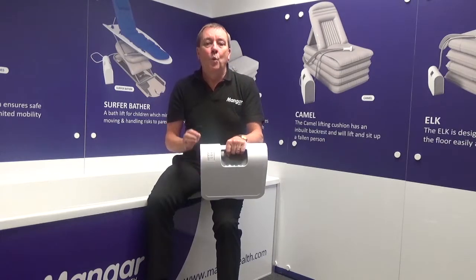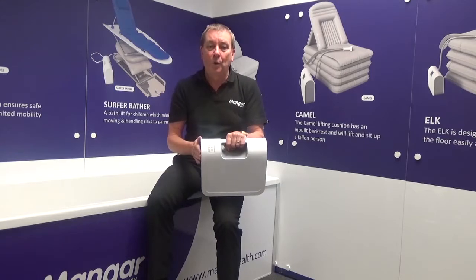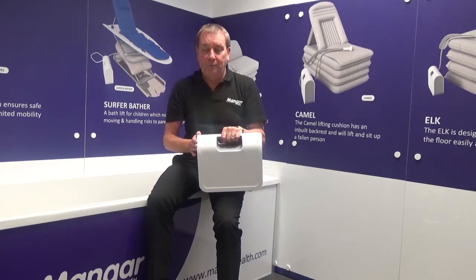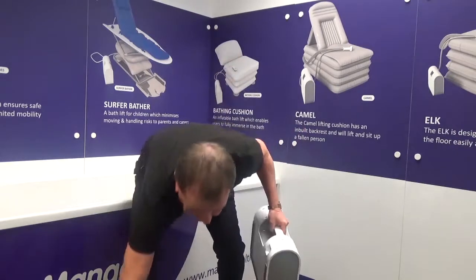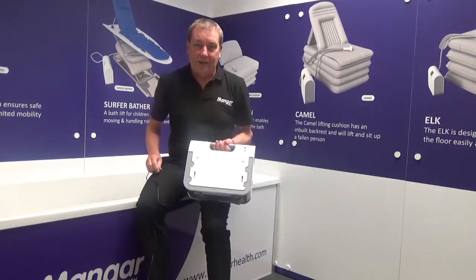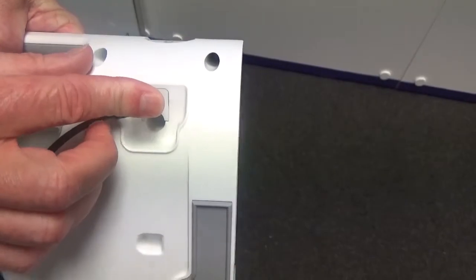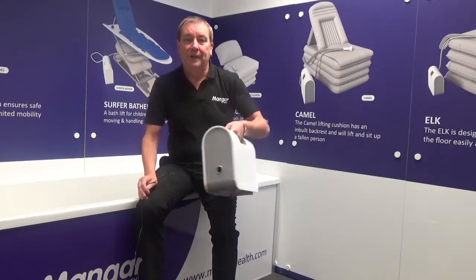However, when I receive my compressor as a new product, the first thing I want to do is to put that compressor on charge. We quite simply charge the compressor by using the supplied charger. On the back of my battery light indicator you'll find a small pin which the charger fits into. The charger can then be fitted to the mains and the unit will begin to charge.